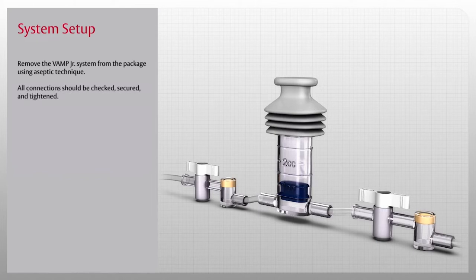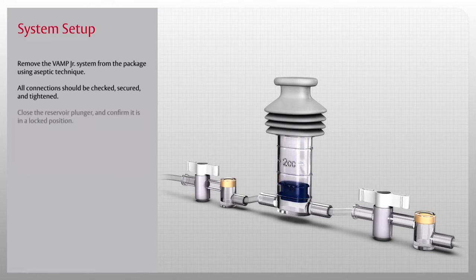All connections should be checked, secured, and tightened. Close the reservoir plunger and confirm it is in a locked position.